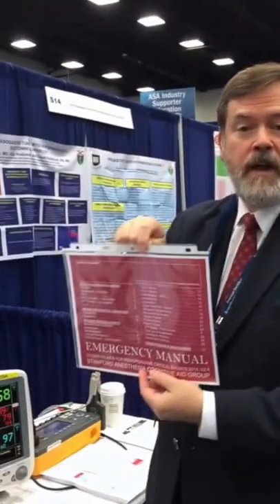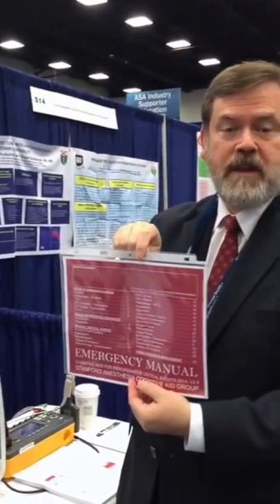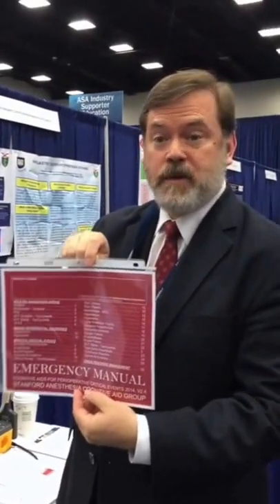What if we could make our monitor smarter so that an app could monitor the patient and when it detects a problem could automatically bring up a help page, something like the Stanford Emergency Manual? And that's exactly what we built using our open ICE platform at Mass General Hospital.